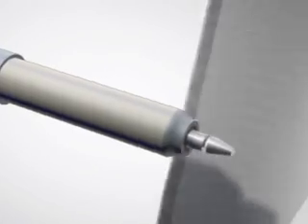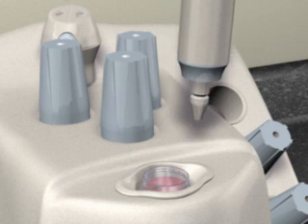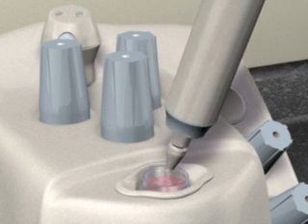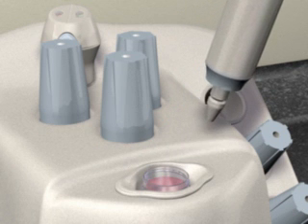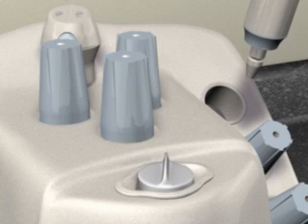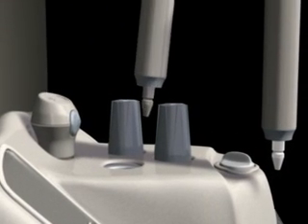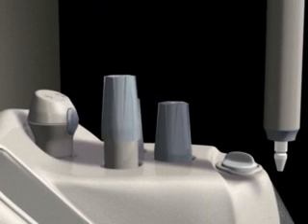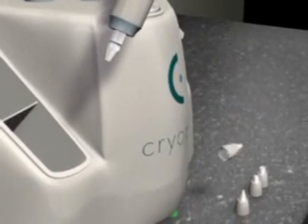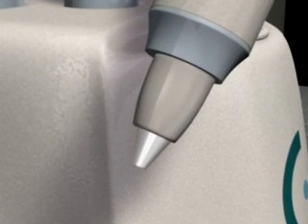From the holding wells, remove a warm pen, wipe dry, and gently dip the pen into the reservoir cup. It is important to wipe the pens dry before dipping into the reservoir cup — failure to do so may contaminate the solution and cause failure of the unit. Select a CryoPen from its seat in the chilling well and replace with a dipped pen from the holding well. Select a tip appropriate for your procedure and carefully fit the tip on the end of the pen. You are now ready to perform your cryosurgery procedure.